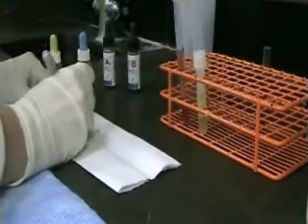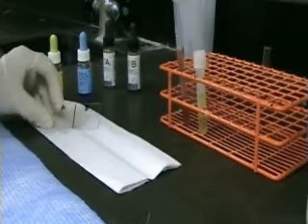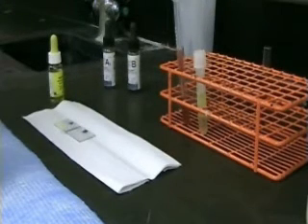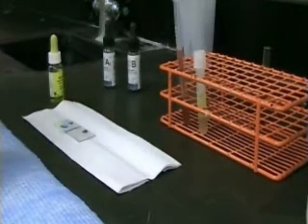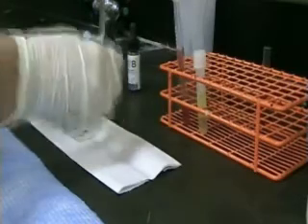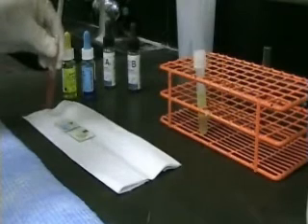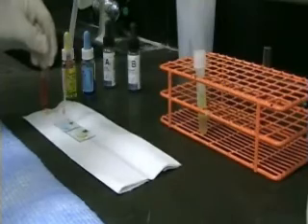Let's test a patient, red cells in plasma, for antigen A and antigen B. Place your anti-sera in the corresponding spots on your slide. Mix your patient red cell suspension thoroughly and place a corresponding drop on each side of the slide.